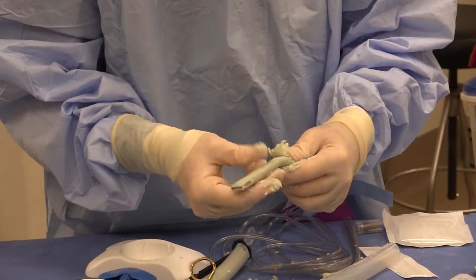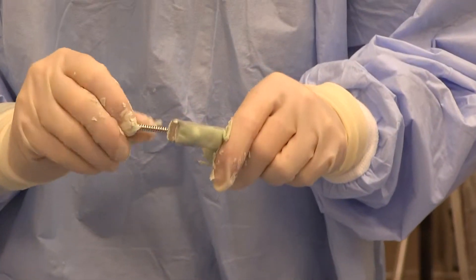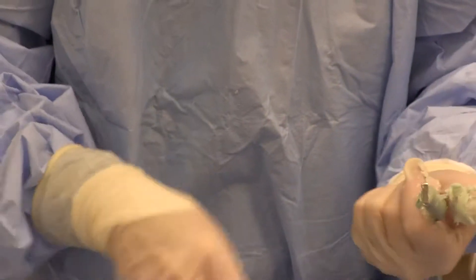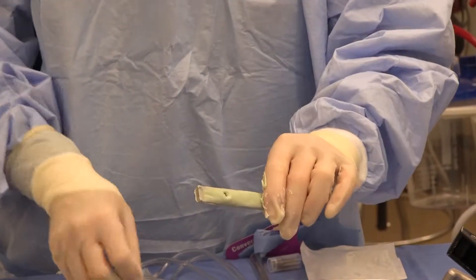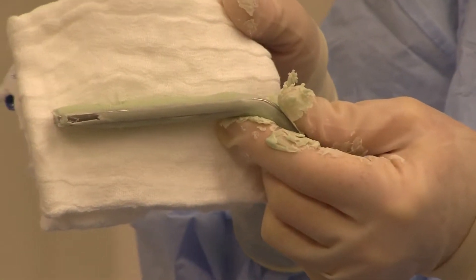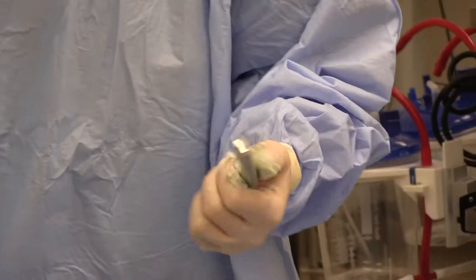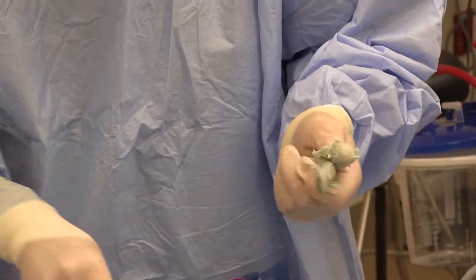At this point, I can drill out the holes or I can put a screw through. But if you really want a nice, even coating without problems, you should just wait for it to completely dry and then drill it out. Look at that — the plate size compared to the actual plate size is a really thin coating. I think this is completely reasonable; it doesn't really add much in the soft tissue department. I wind up doing this myself on the back table — I don't let anyone else do it, because the fiddle factor for an antibiotic-coated plate is high, as you can see.